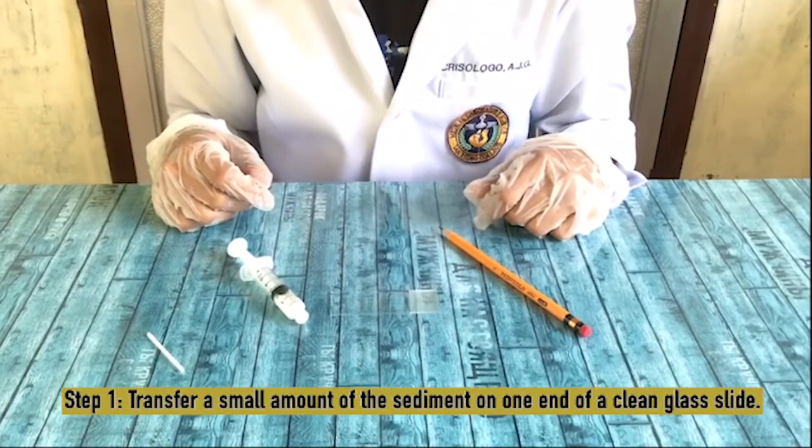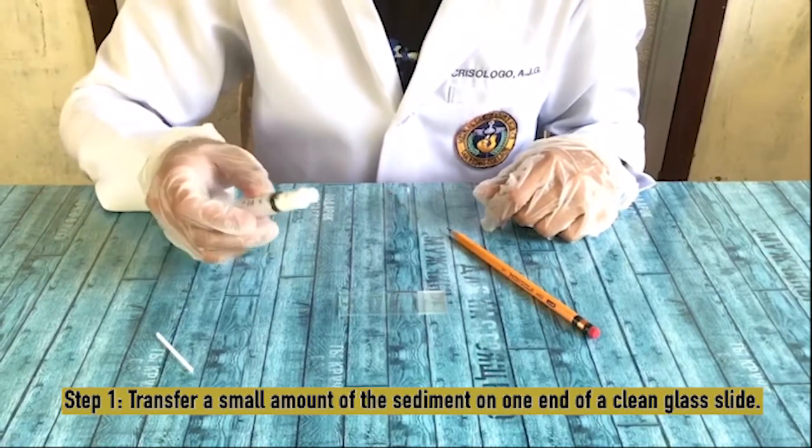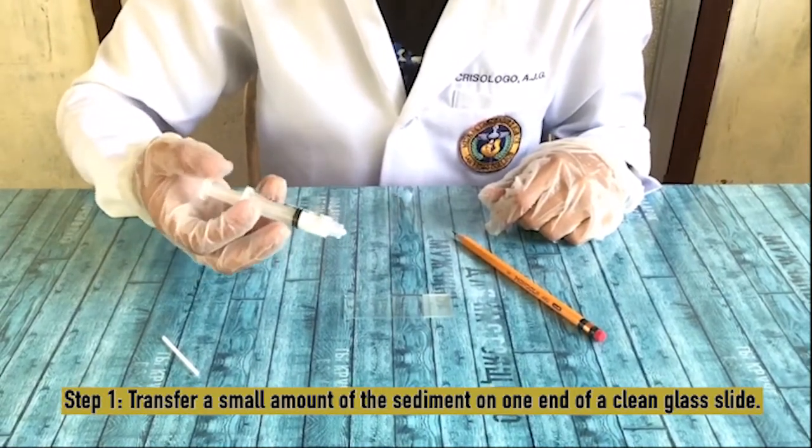Steps in spreading. First, transfer a small amount of the sediment on one end of a clean glass slide.